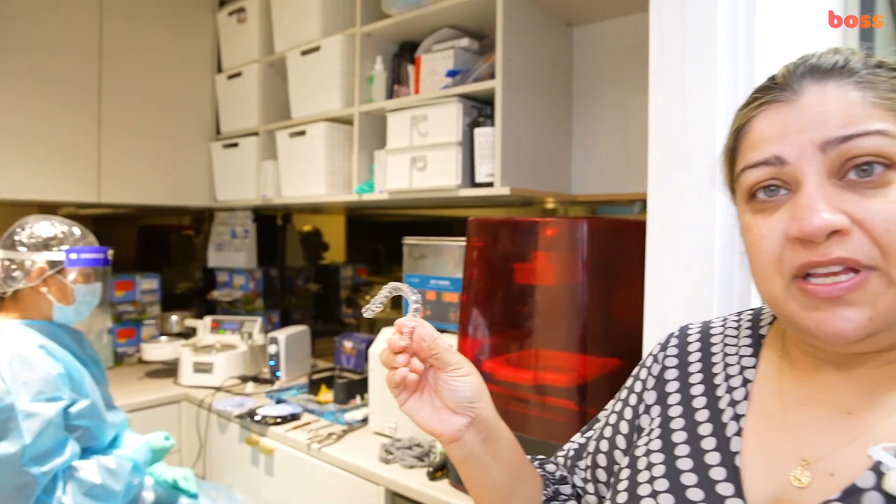We won't go over trimming today for this retainer, but this is how we use Ministar. Thank you so much for watching.